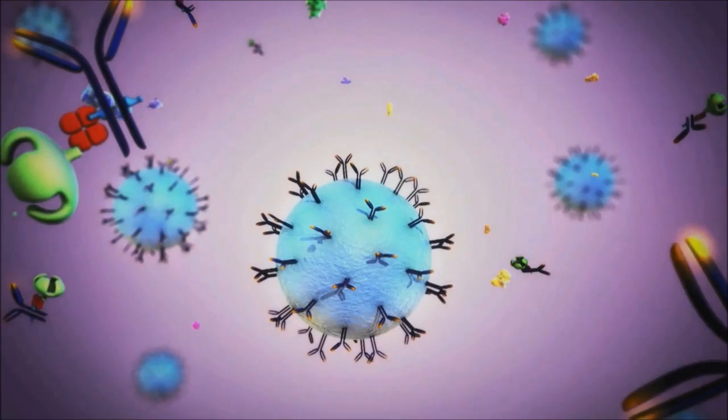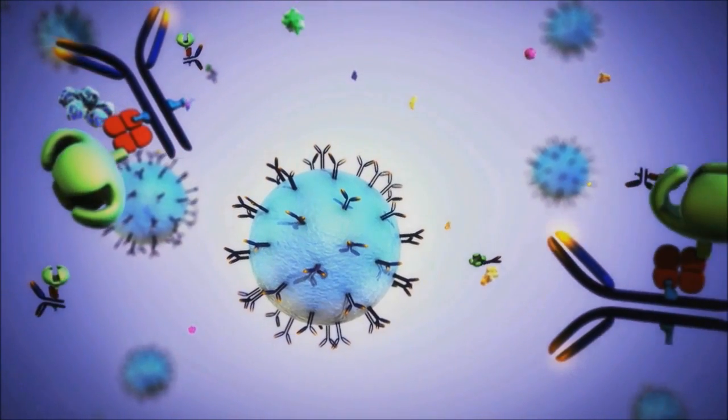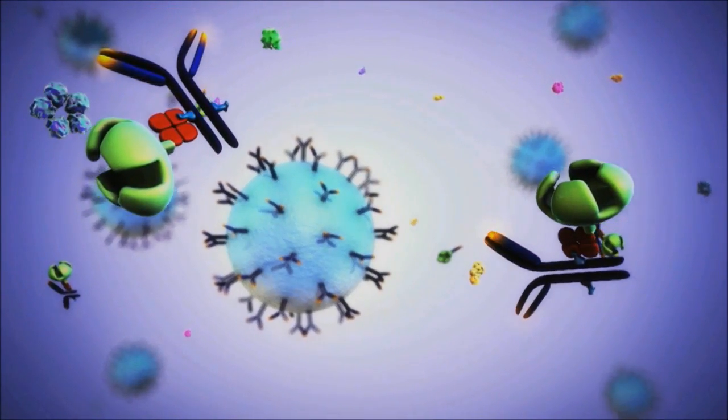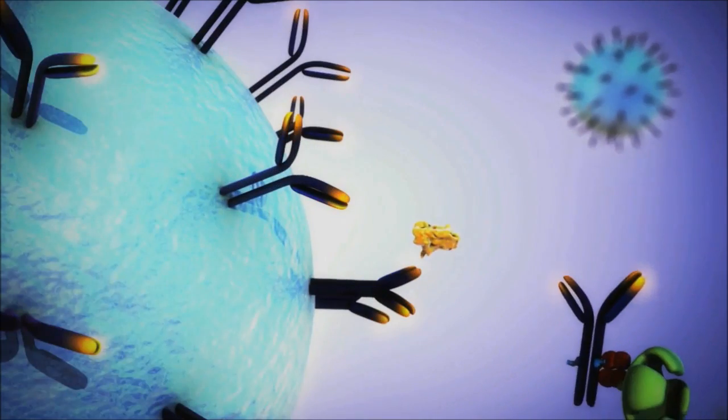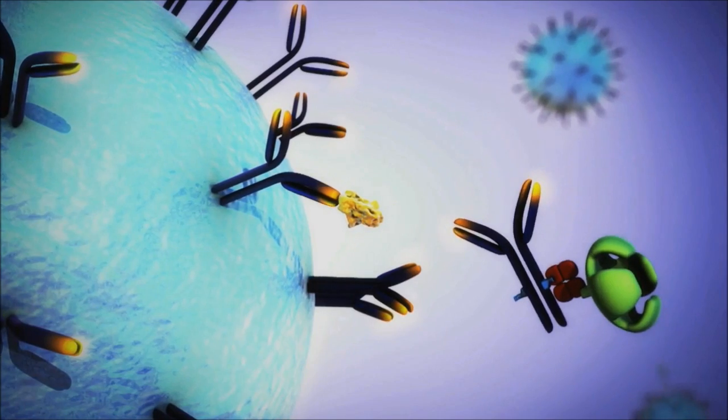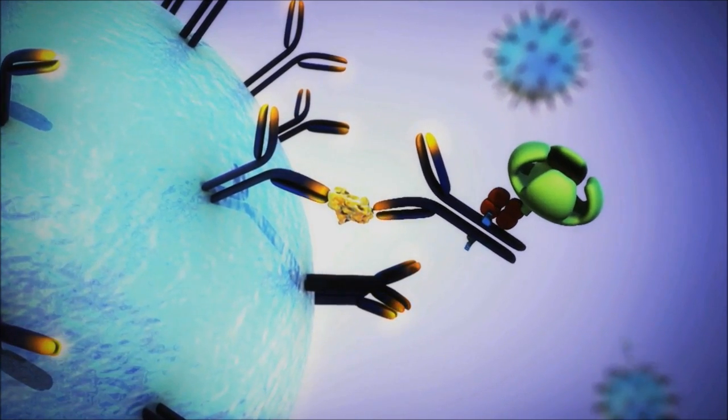Next, detection antibodies containing an enzyme capable of generating fluorescent product are introduced to the solution. The objective is to form an immunocomplex consisting of the bead, bound protein, and detection antibody.